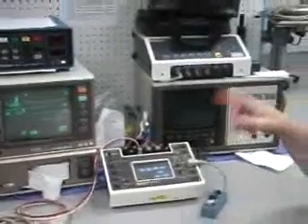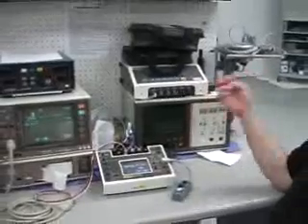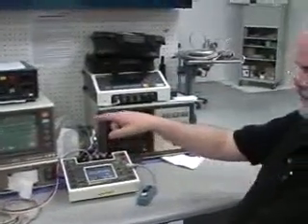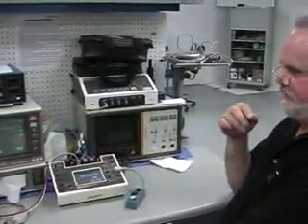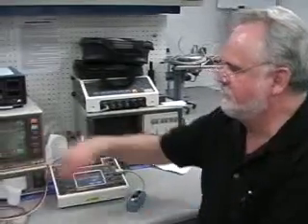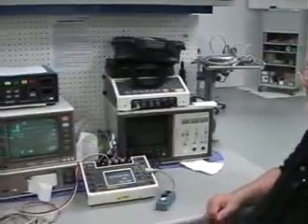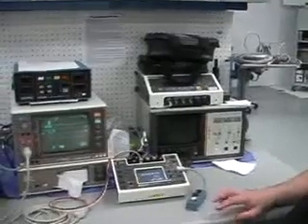As the electrical activity changes, blood pressure and respiration change, and when it goes down to asystole, as it's now calling it, which is correct, it will give you zero respiration, no blood pressures, and a flatline ECG. So again, a good test for the basic operation of the alarms.